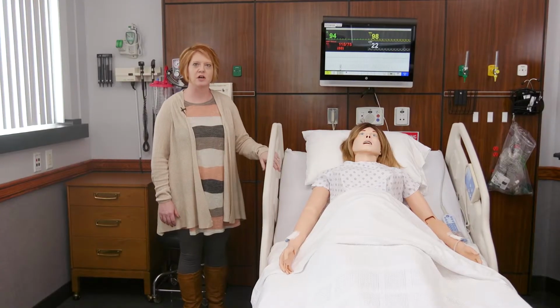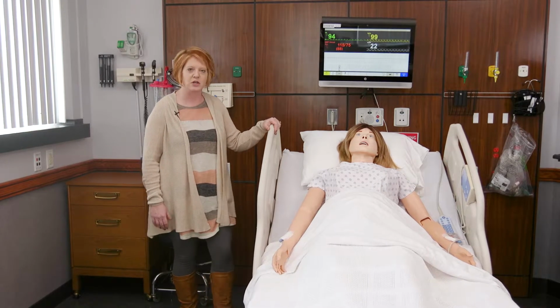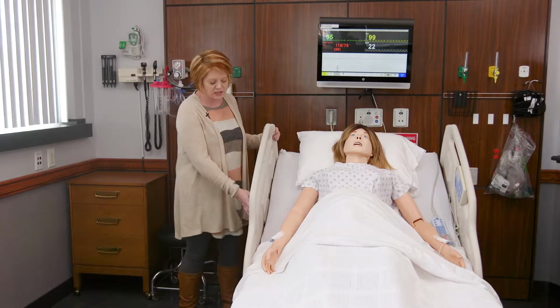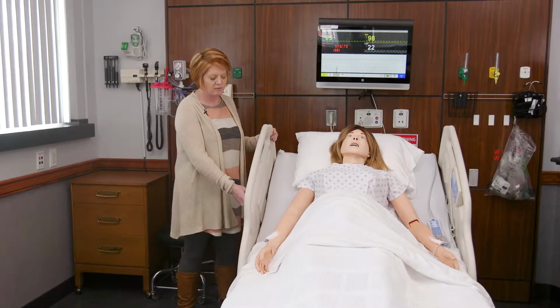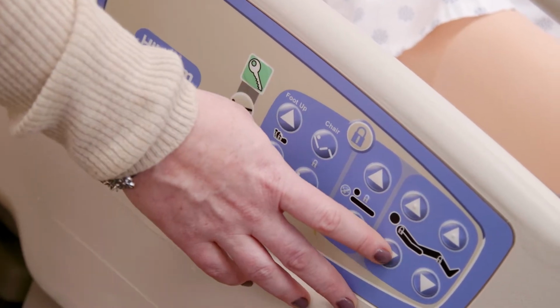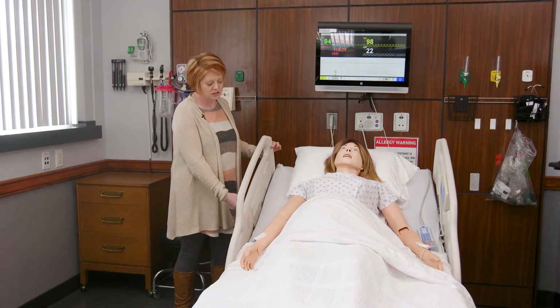This is one of our nicer hospital beds that is electronic in nature, so if you push a bunch of buttons, your patient will actually eject out of the bed, but you can raise and lower the head up as needed. So one way to raise up the head of the bed, there's a button on the side that has a picture of a patient head, and you will actually push the up button to raise the head up as such, and then if she says, oh, that's too far, then you push the button and her head can go back down to a more comfortable position.